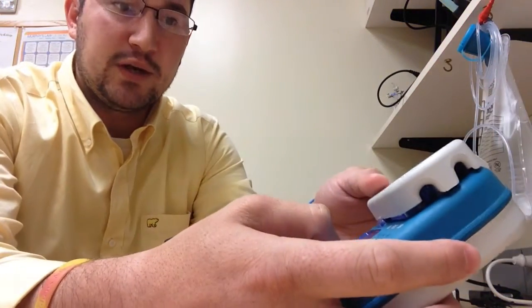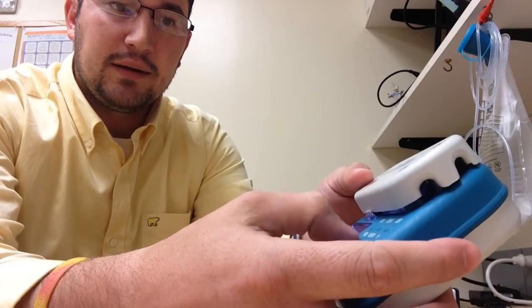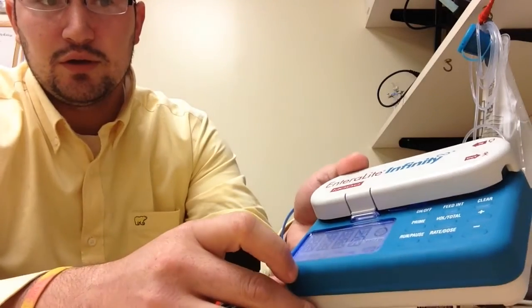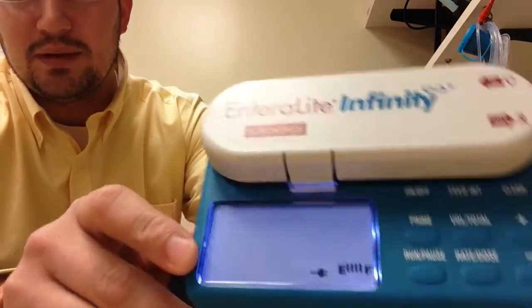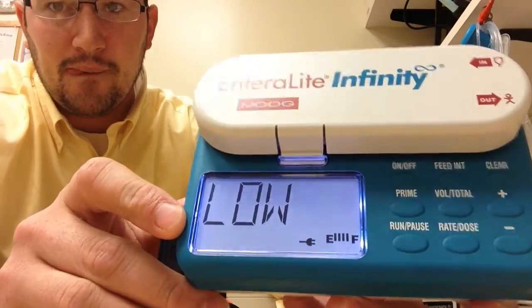And then if you hit the plus button, it'll change it to, or the minus button, sorry. It'll go back to beep low. But you want to have it on beep high.